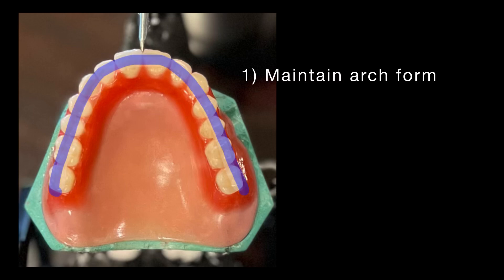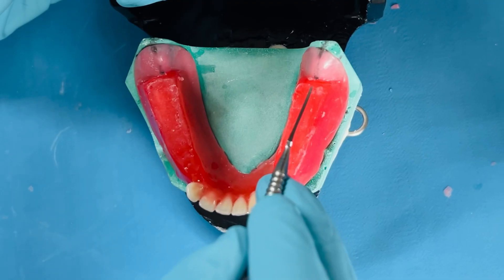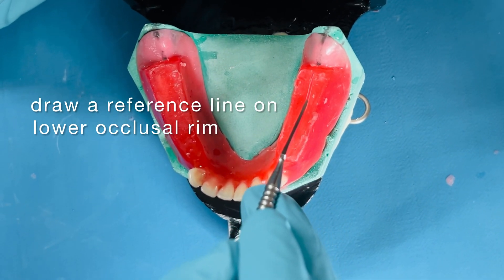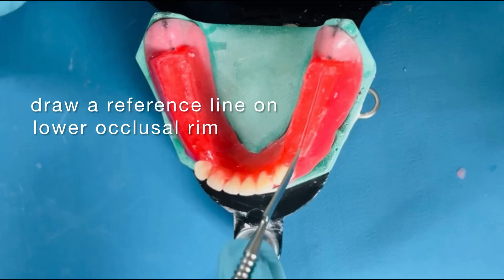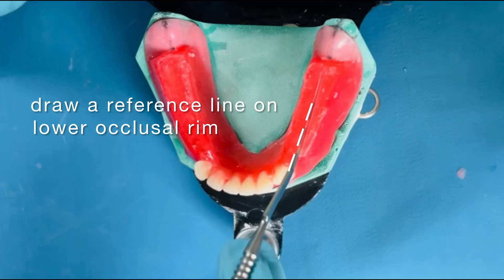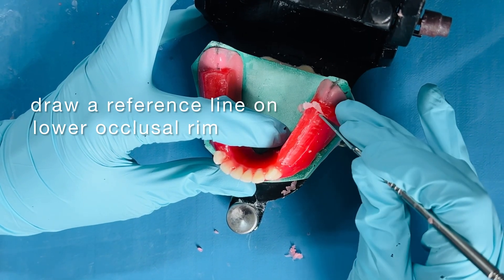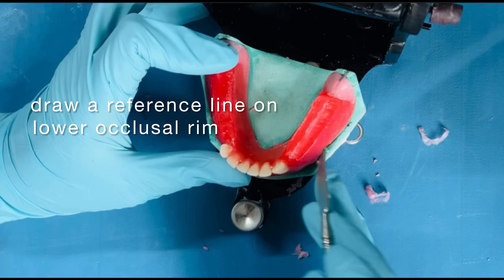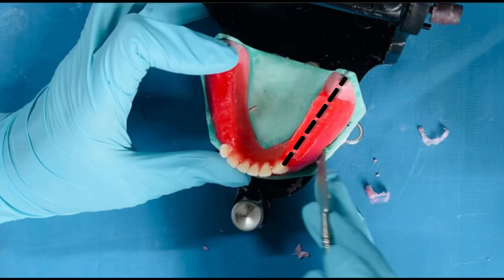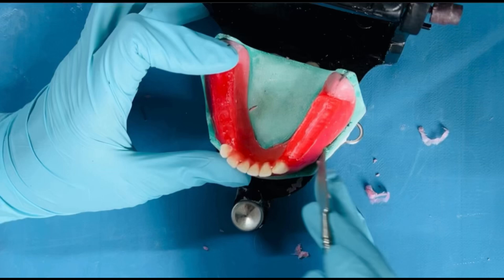The arch form has to be maintained. Posterior teeth have to be set on the center of the ridge. To achieve this, you begin by drawing a guideline on the center of the lower occlusal rim. Connect the tip of the canine to the reference line drawn on the cast. 0.5 to 1 mm of wax buccal to this line is removed. Watch ahead to understand the purpose of this line. Now we are ready to begin with arranging maxillary posterior teeth.